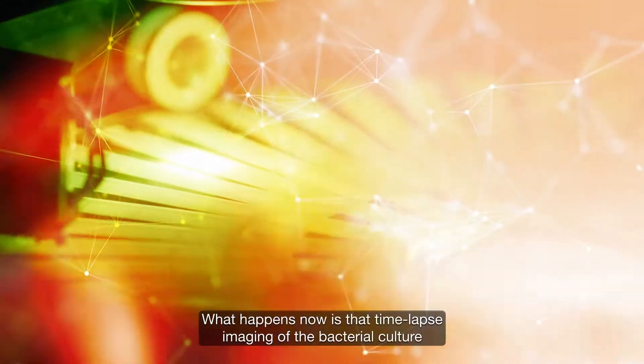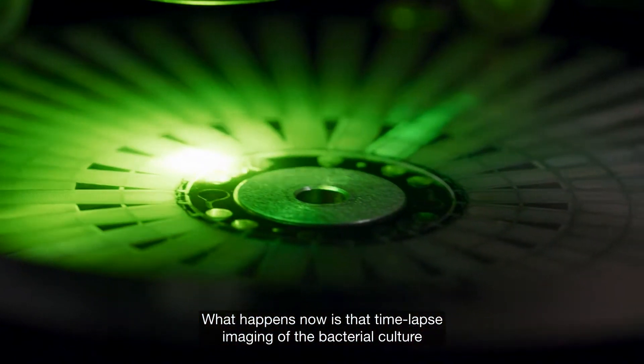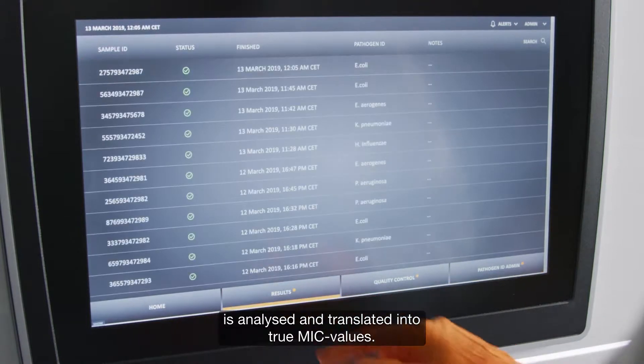What happens now is that time-lapse imaging of the bacterial culture is analyzed and translated into true MIC values.